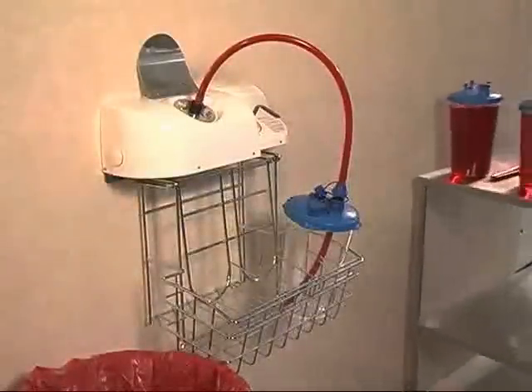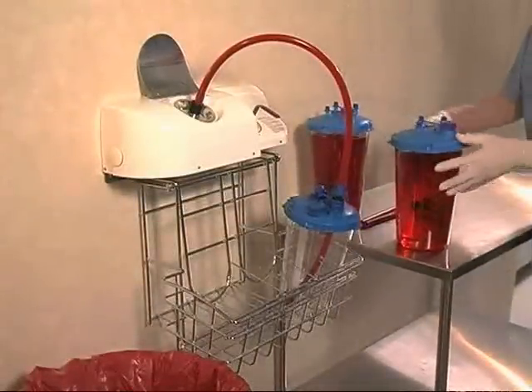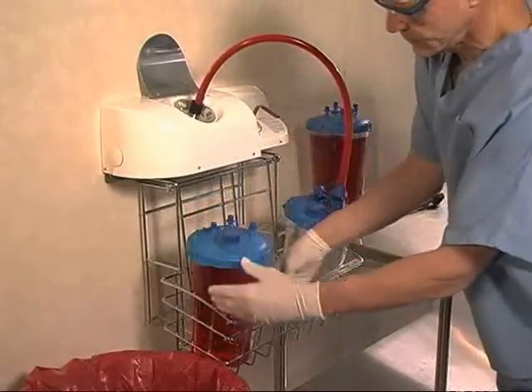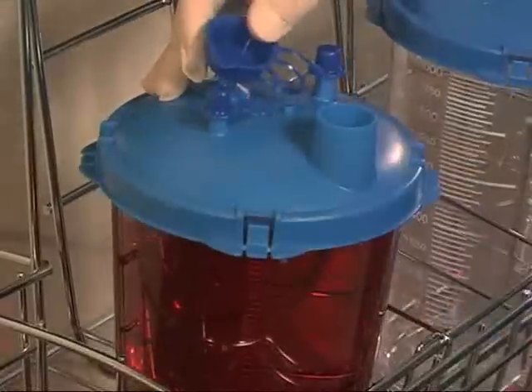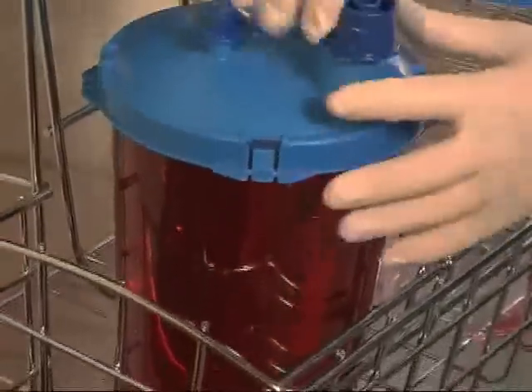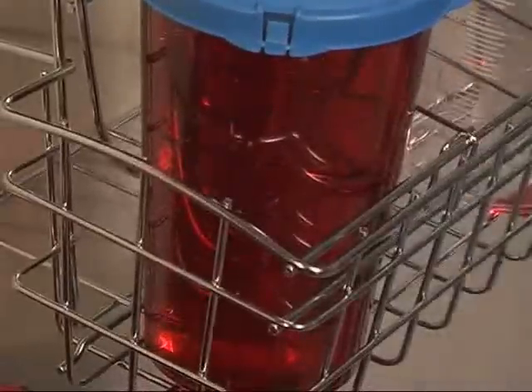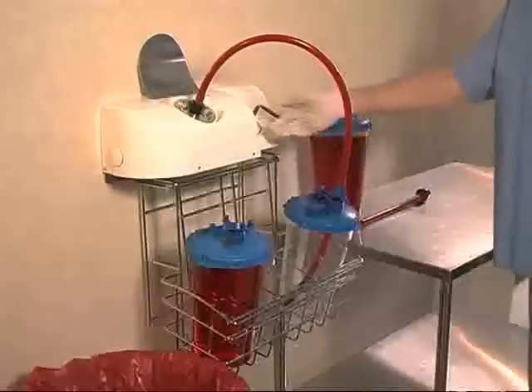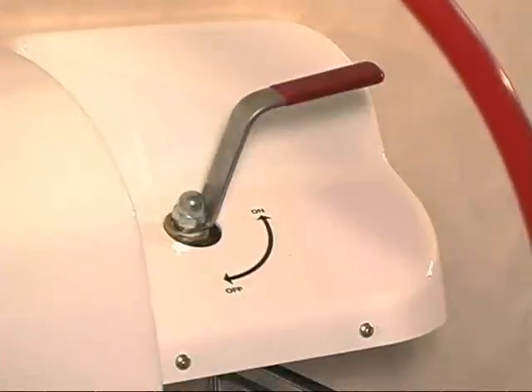In our first scenario, the healthcare professional rolls a cart containing multiple canisters adjacent to the device. He places one of the filled canisters in the wire basket. Next, he opens the cap on the accessory port and inserts the dip tube into the canister full of liquid medical waste. The dip tube is sized for the height of the canister, allowing fluid in the bottom of the canister to be captured and removed. You activate the pump by turning the handle from the off to the on position.